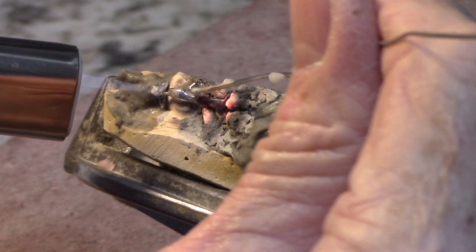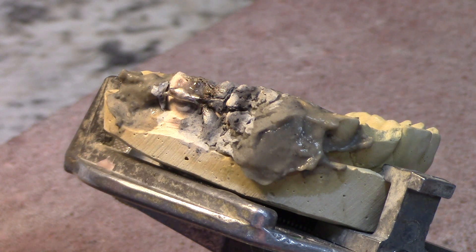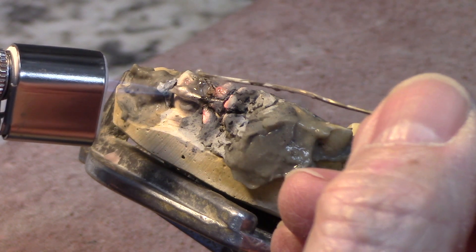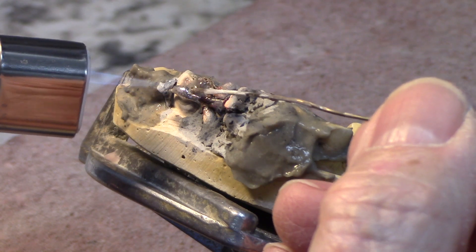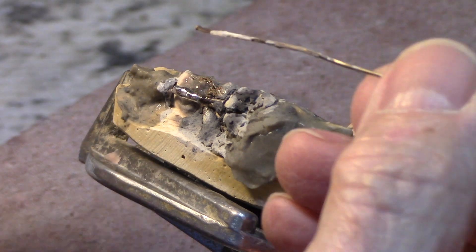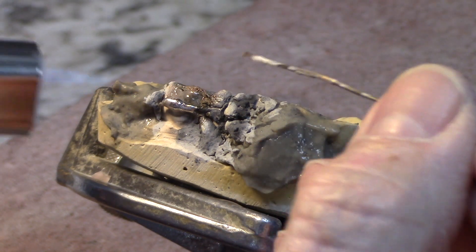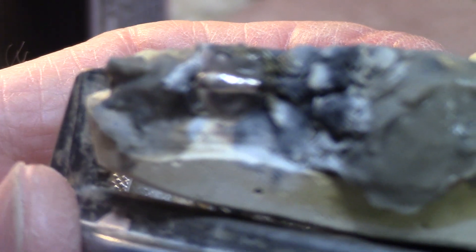This heat is not anywhere close to what I'm used to dealing with. I'm not doing a really great job here, but you see what I'm getting at. Just enough heat to barely melt it. I'm going to put just a little touch right back here on the tip end. There we go — that's what I wanted. I've got this thing totally encased in solder.